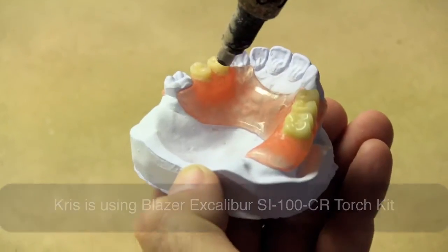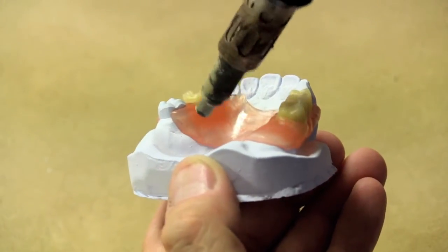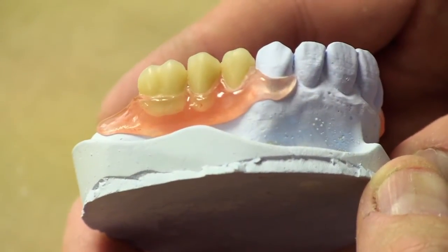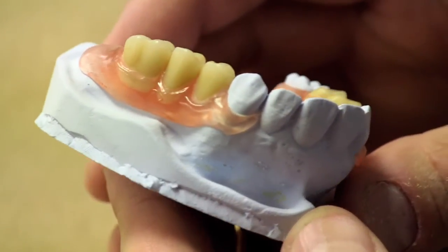Heat an area, shine it, then jump to a different area, shine that. By the time you come back to that original one, it will have cooled down. That'll reduce the risk of warpage.